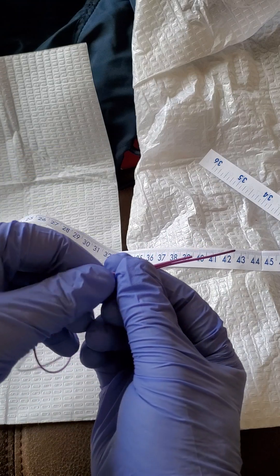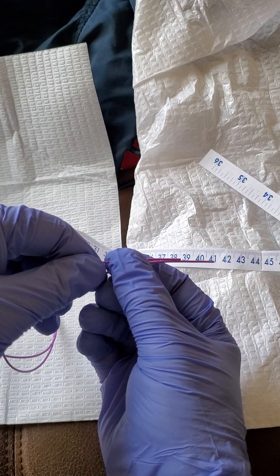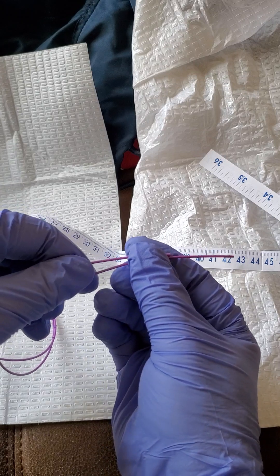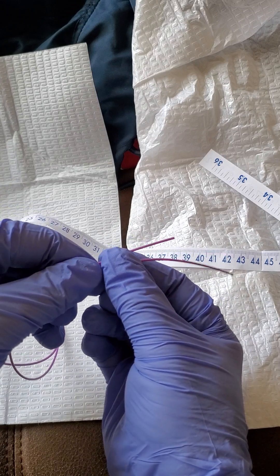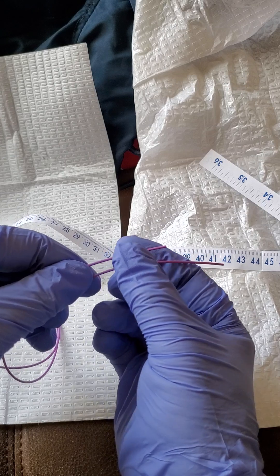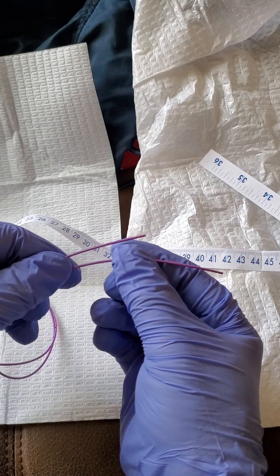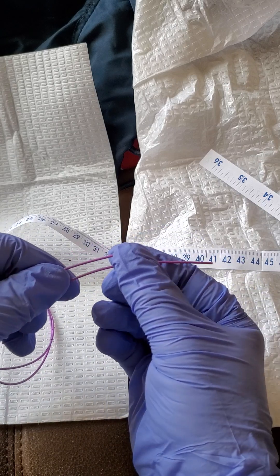so that you can physically measure it, look at the tip, and make sure the tip appears to be intact. Then record it as approximately 42 centimeters, approximately 48 centimeters, that kind of thing.